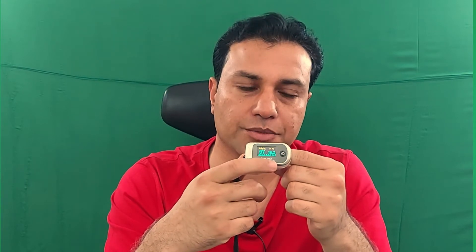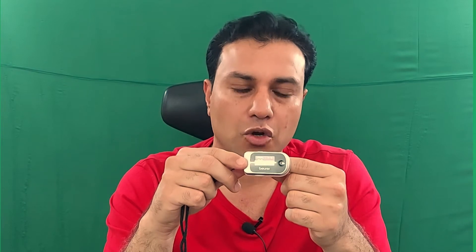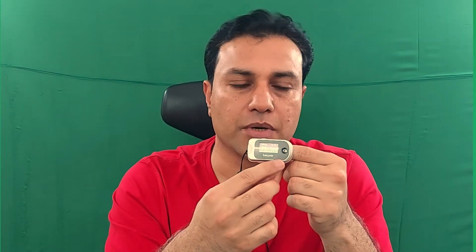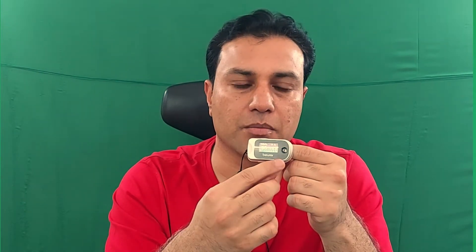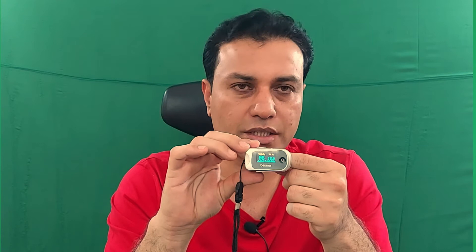We can use this pulse oximeter at home for heart patients, asthmatic patients, COPD patients, and even pneumonia patients — and especially nowadays for COVID-19 positive patients. For example, if a COVID-19 positive patient's oxygen saturation comes down below 90%, you have to seek medical attention, and the physician may consider supplementary oxygen.